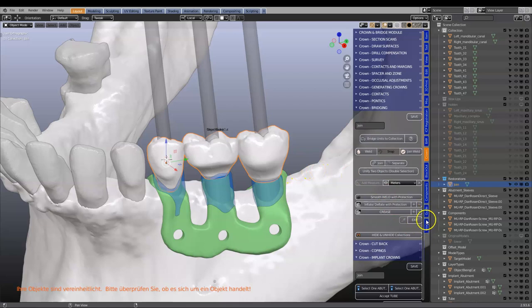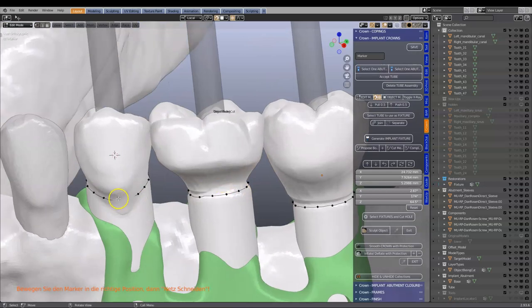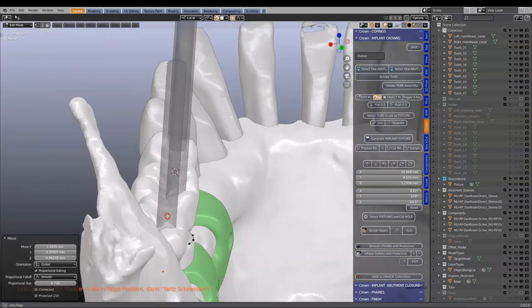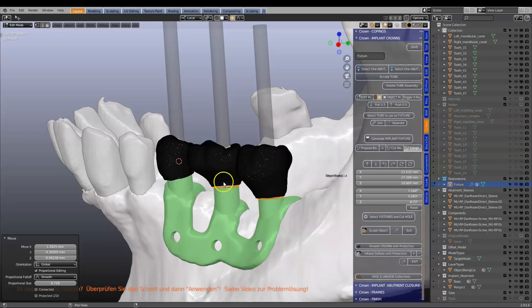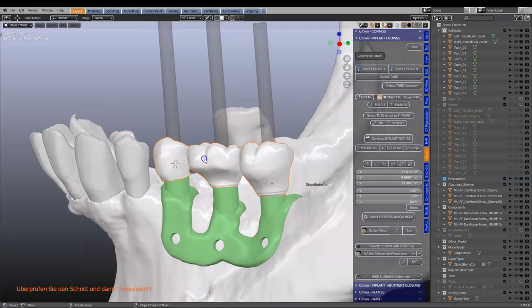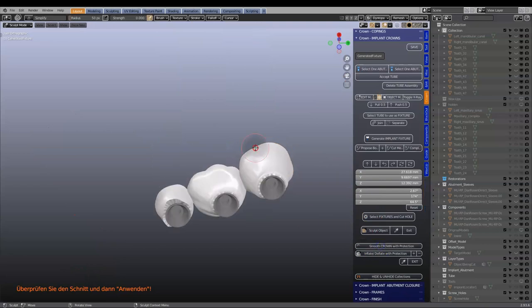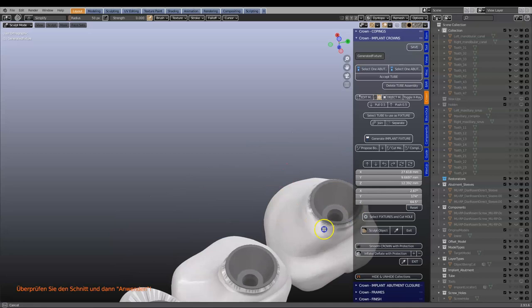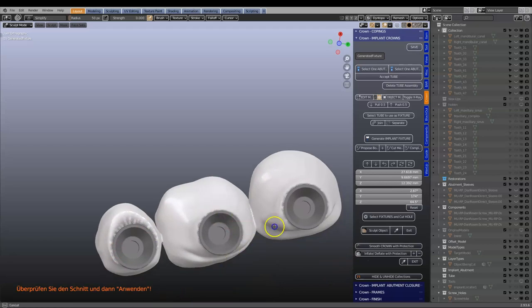Next we're going to connect them up. Click on 'proposed border' and inspect that the border is above the surface, which it mostly is. Then cut the mesh and complete it. I'll go Ctrl I and hide, then select it and give it a quick smoothing. That's looking good.